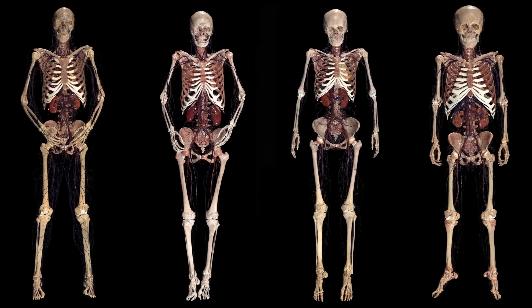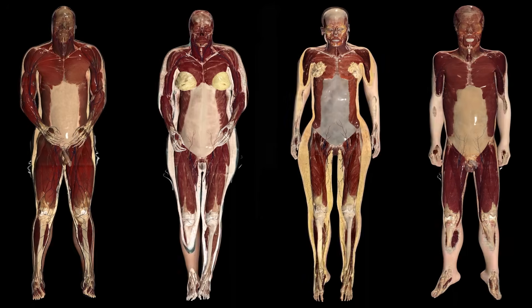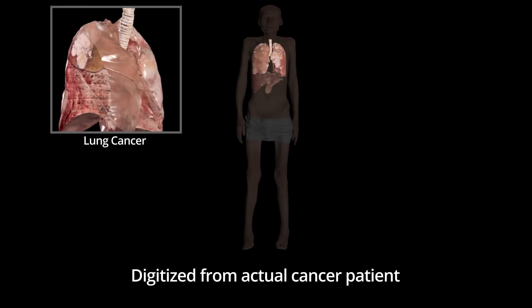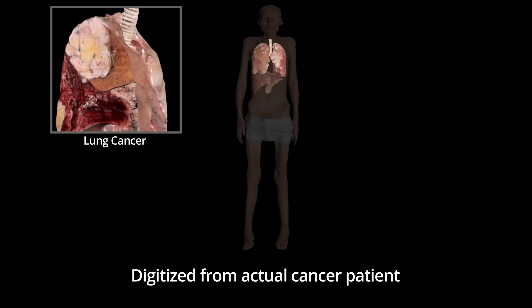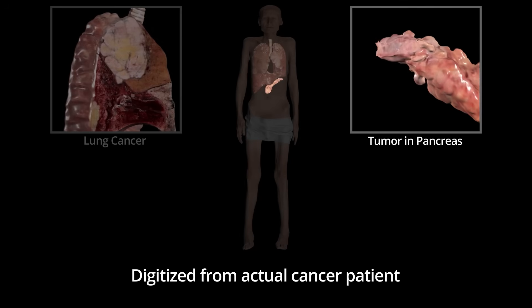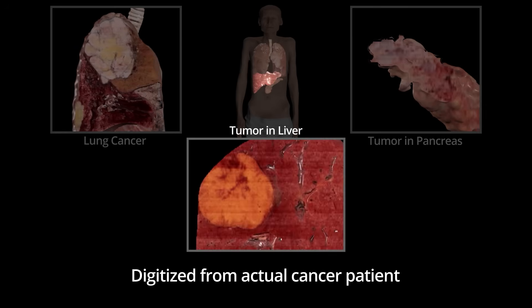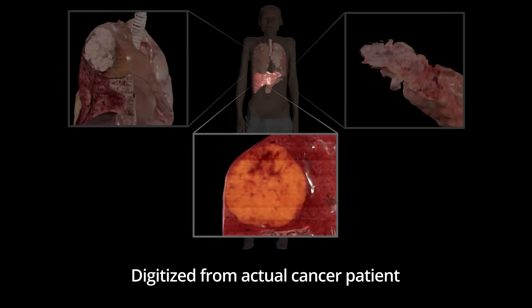In Table 10, learners can also explore the impact of time and disease on an aging body. Our newest Anatomage body, Hans, was a real-life individual with lung cancer who passed away at age 70. Hans offers real-world insight into various conditions, including tumors in the chest, pancreas, and liver.